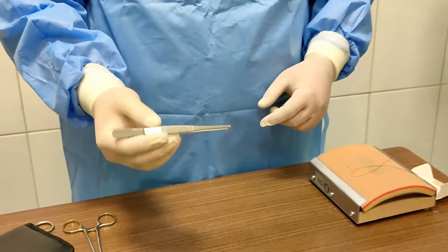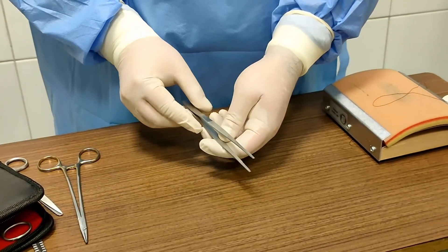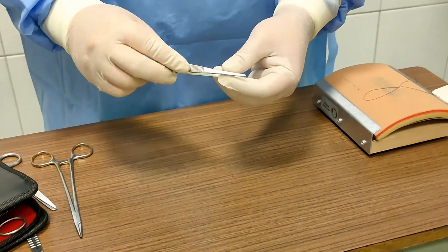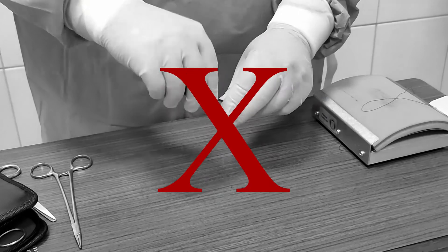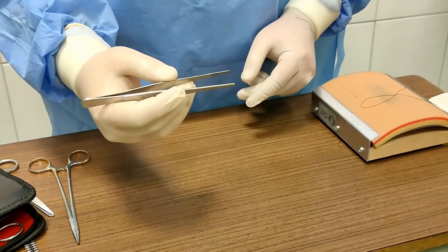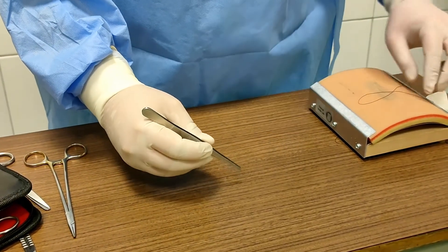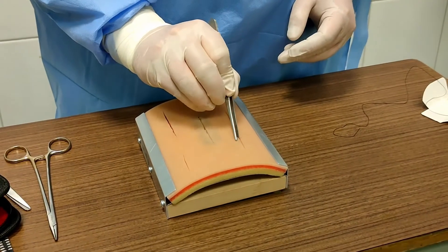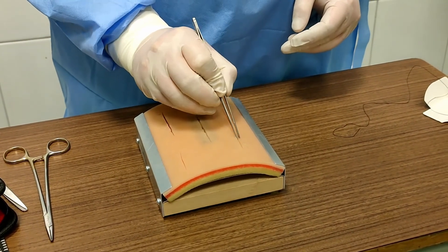Here we have thumb forceps, which are generally used to grasp tissue. The jaws on the graspers are atraumatic, making this instrument suitable for grasping delicate tissues.